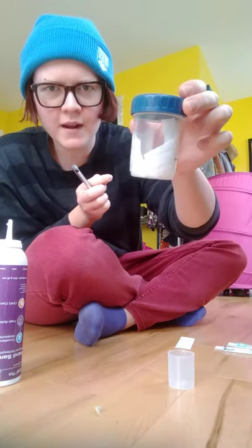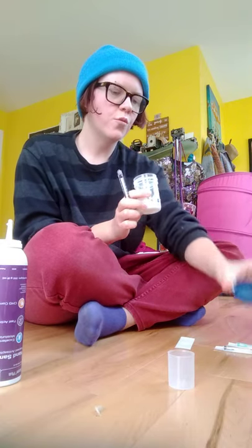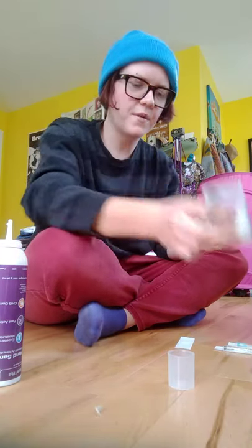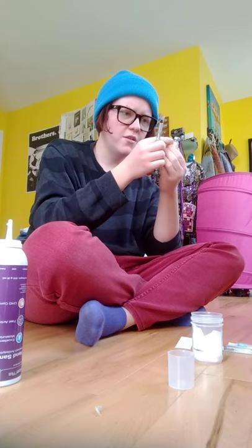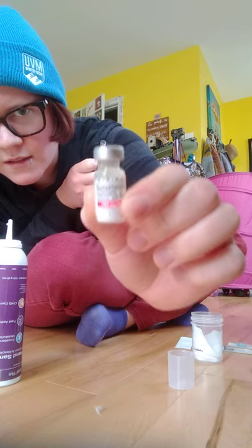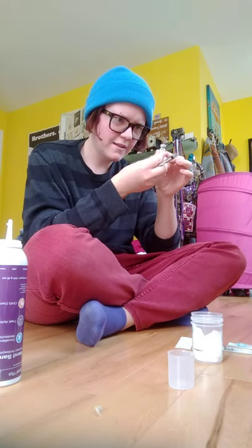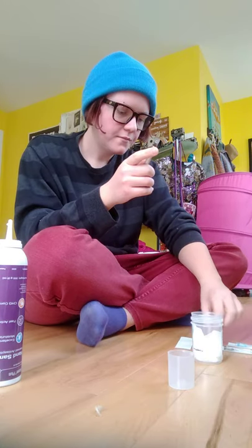I got one of these storage containers when I got my first kit from my university's health center. Once you open the testosterone, you can put it in here with a little bandage or cloth so it doesn't bounce around. Then you've got your little bottle — this is testosterone cypionate — and this is pretty much what you're going to use.